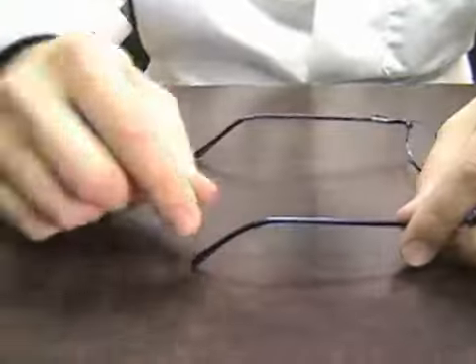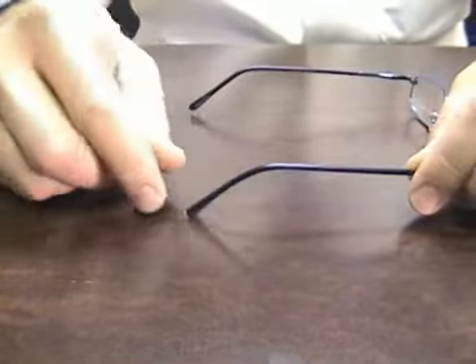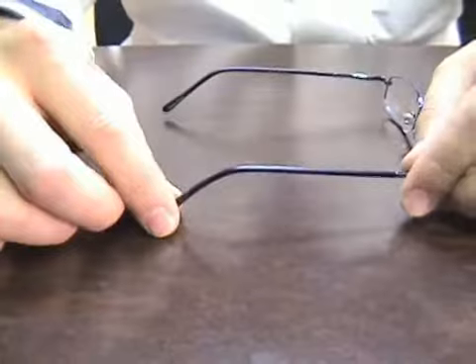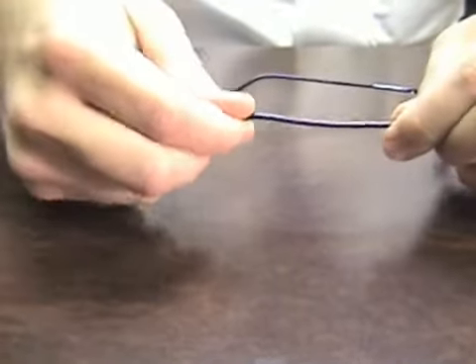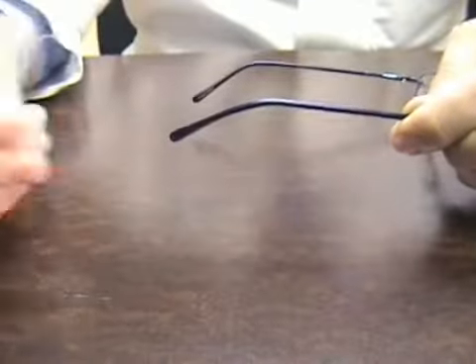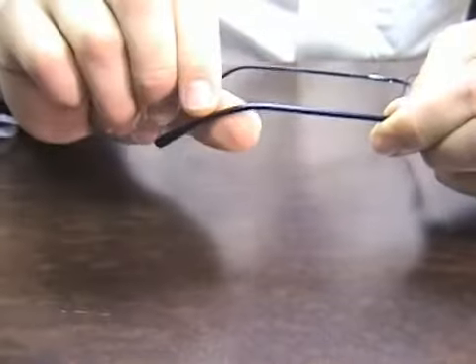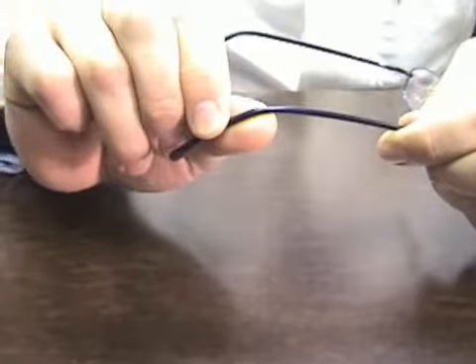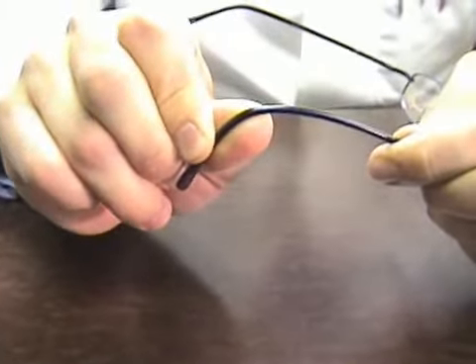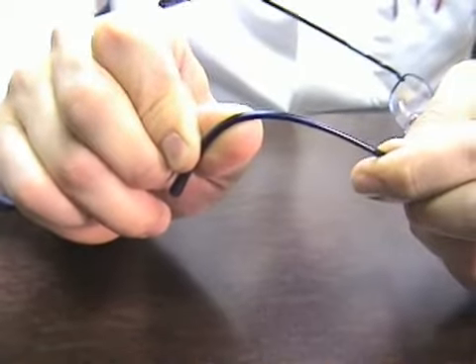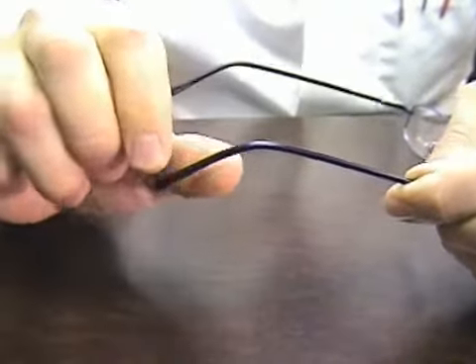The earpiece is this portion of the frame, and if the earpiece is sticking out too far, which would be in a case such as this, you can take your thumb, curve it, and apply a minimal amount of force causing the earpiece to turn.